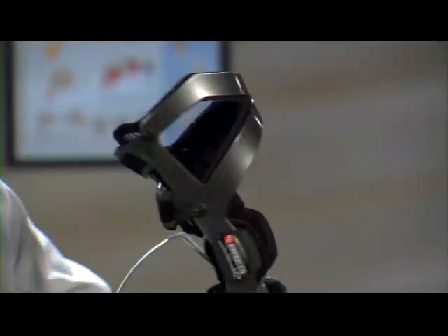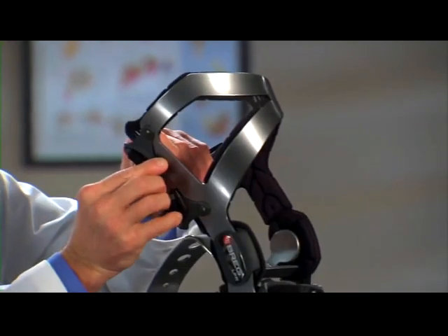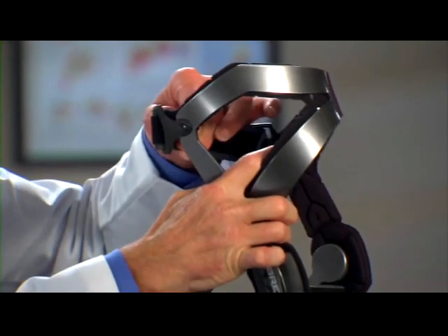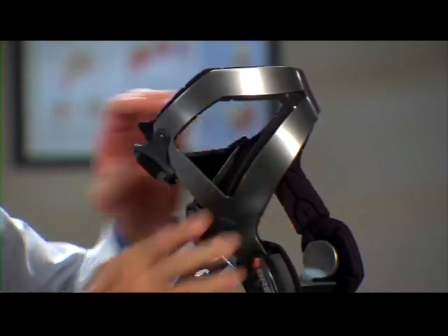There's one other thing I'd like to point out. See these strap tabs? They pivot so the straps can accommodate the unique anatomy of your leg. The LPR knee brace is state-of-the-art and can help you enjoy your most intense activities, but it can't prevent or reduce all possible knee injuries. If you've had a knee injury, your doctor will talk to you about your treatment program and whether you need to change your activity level.